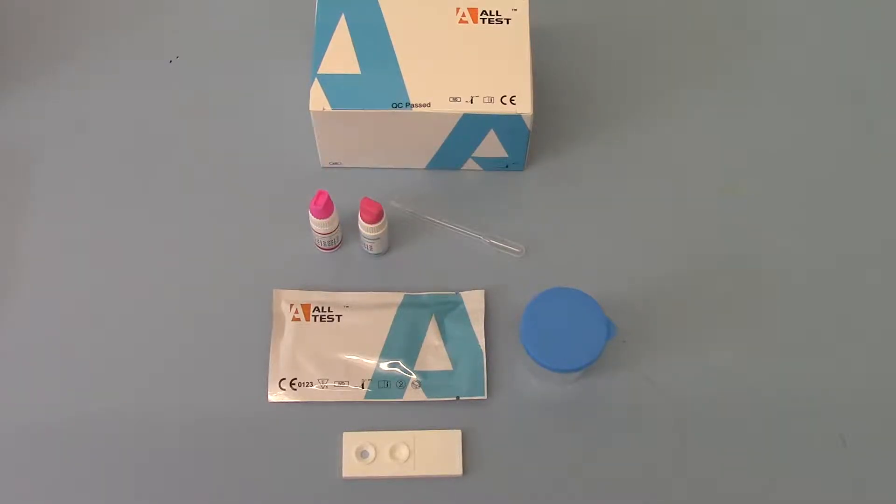This screen does not include a screen of motility, it is a simple count test. Now what we've got in front of you is the contents of the box which is on the top here.